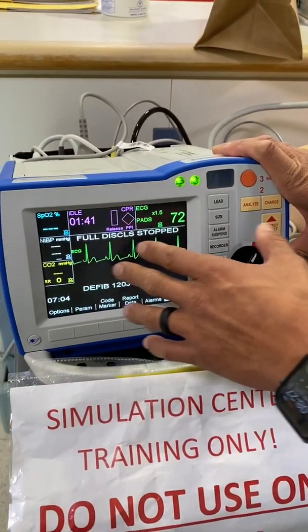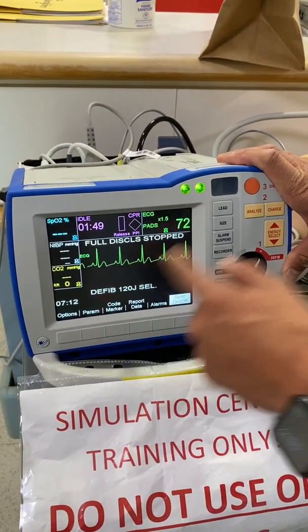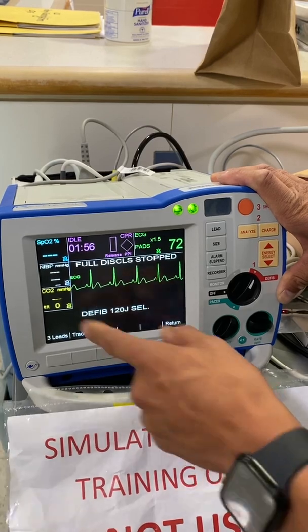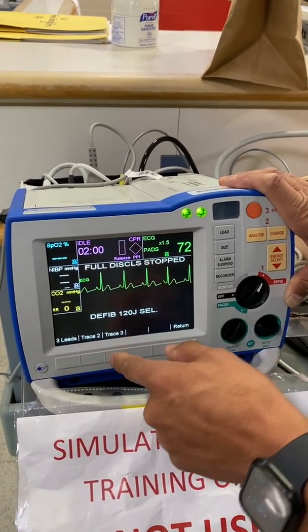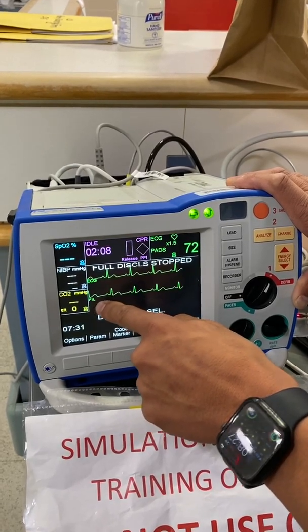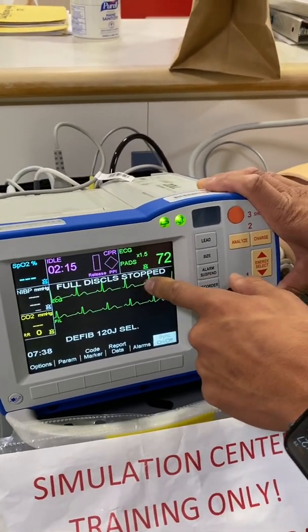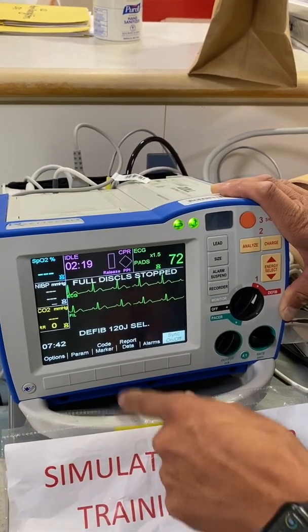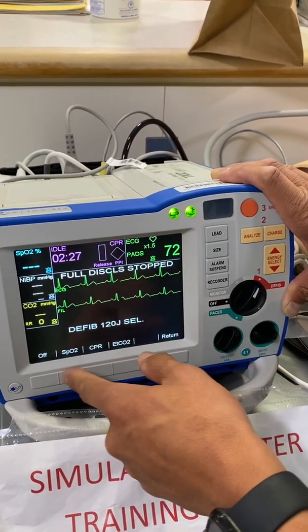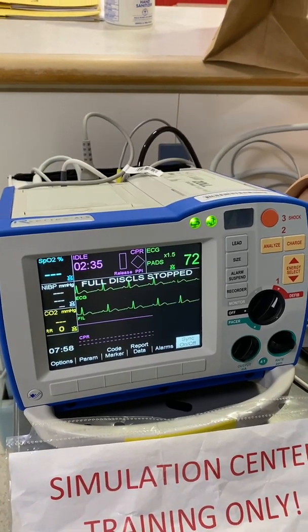This defibrillator has a filtered EKG tracing which tells you the intrinsic rhythm and filters out the artifact from CPR. To get to it, go to options, then traces. If you press trace two, it shows two leads; press trace three for three leads — let's do two, which is the default. The filtered trace shows the intrinsic rhythm, while EKG is the rhythm received but may have artifact from CPR compressions. If you do three traces, you can also add CPR compressions display, which people like to see. If you're doing CPR, it'll show up there.